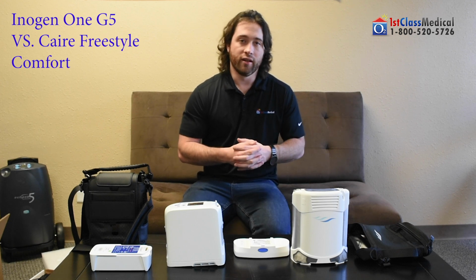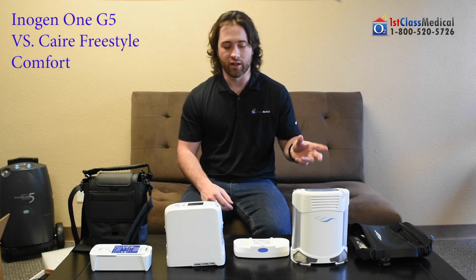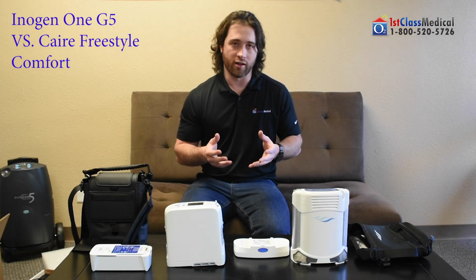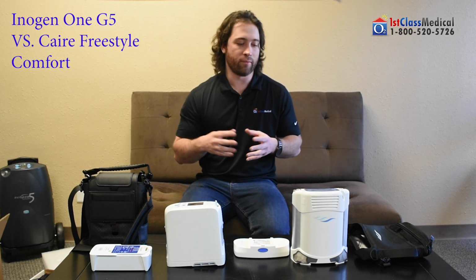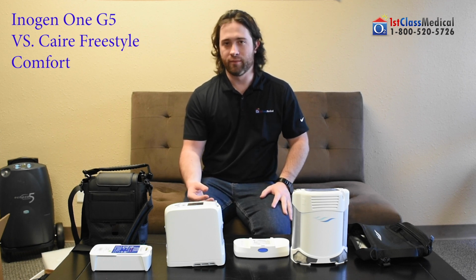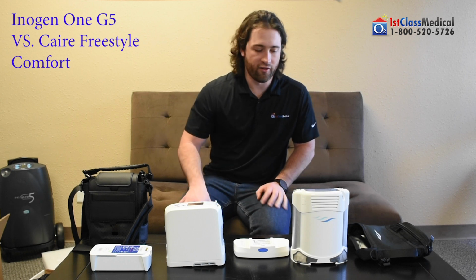Whereas the Caire Freestyle Comfort is going to allow you to have a 3-year warranty on a sieve bed. So for 3 full years, you're going to have the option to have those sieve beds replaced at no additional charge. Huge. Because when you're looking at the actual sieve beds of the concentrator, as I mentioned before, that's the lungs of your concentrator. That's really one of the main parts of the concentrator, to make sure that you're getting that purified, medical grade oxygen. And that's something to keep in mind, because I know that the Inogen seems convenient, and it is convenient, and I love that about it. The only difference is, once again, you're only going to have 1 year of sieve bed replacement as opposed to a 3-year sieve bed replacement on the concentrator itself.